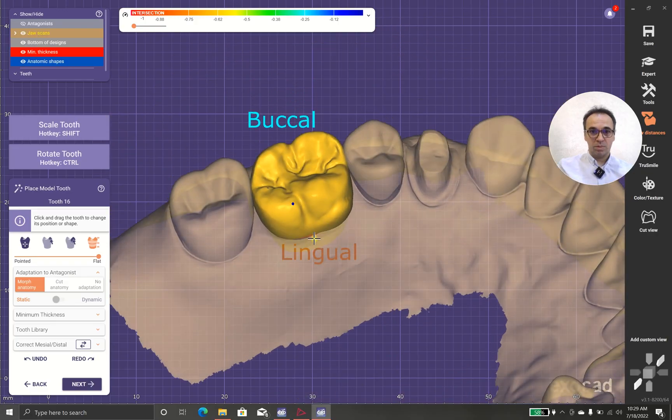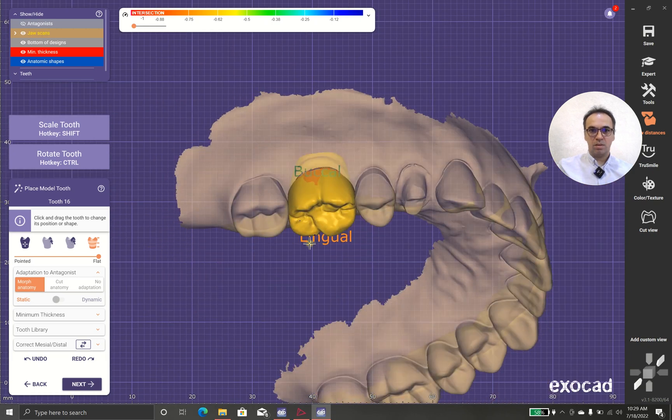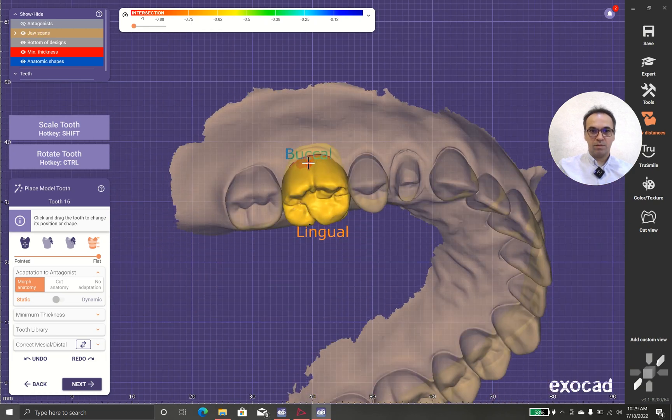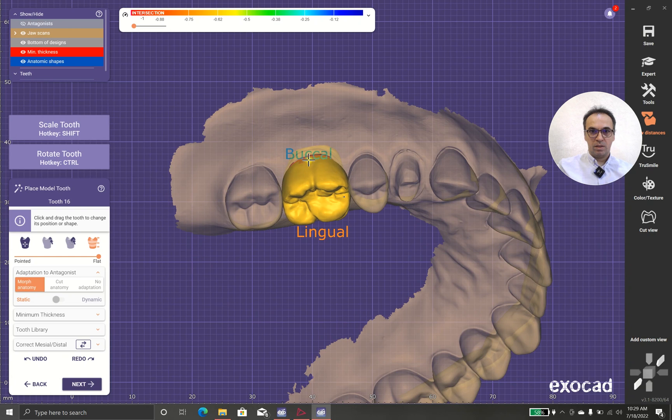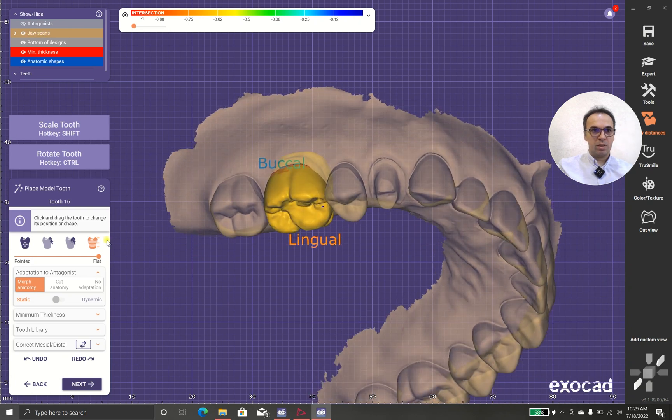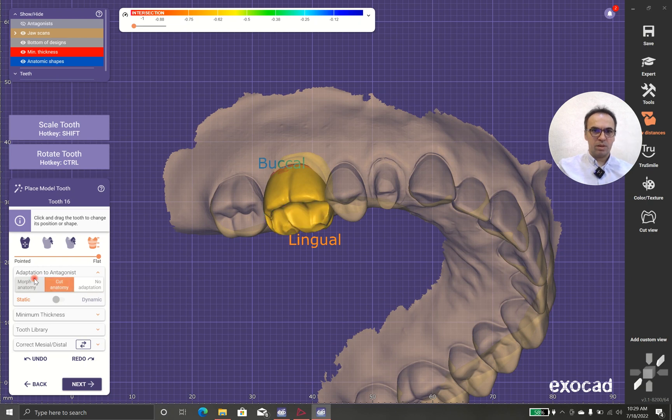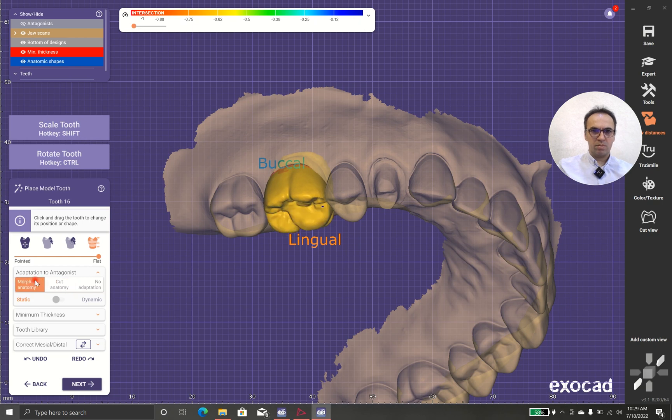Without ruining other pieces, this thing is also good. You can finally make your ideas better and you can have cut anatomy. I don't like that morph anatomy, this is far better, and you can do this.